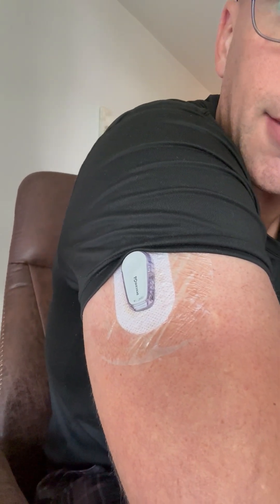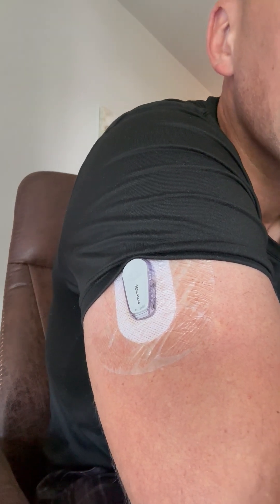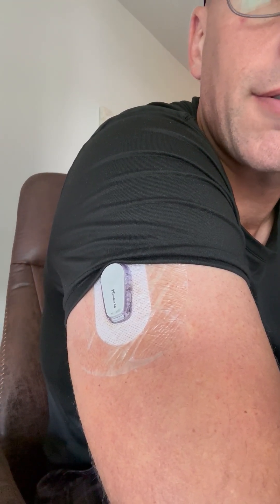So let me show you — probably repetition for anybody that's not aware of this, but I'll demonstrate exactly what to do. So you've got your sensor on, it tells you that it's about to expire and you want to keep it on. What you do is first go to your Dexcom app and stop the sensor session — just like you would normally do if you were going to take it off your body and put on a new one.